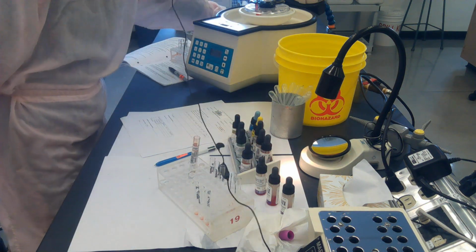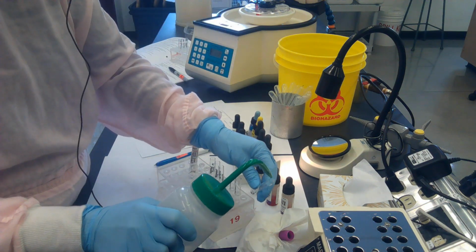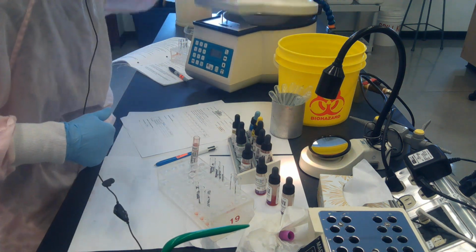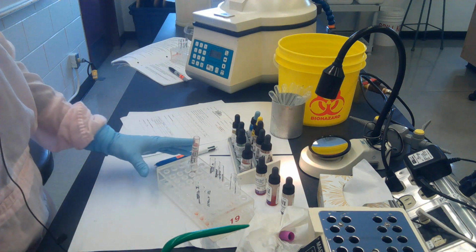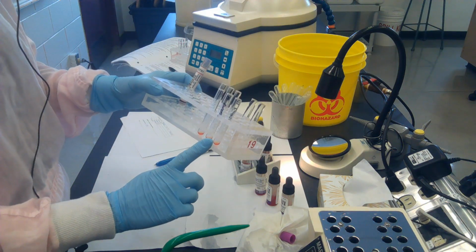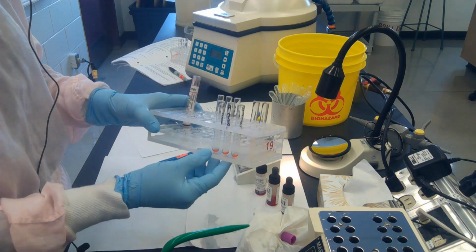Washing cycles are typically 45 seconds for a wash. So I'm just filling a balance tube, putting it on the opposite side, and setting my centrifuge for 45 seconds. In the meantime, what I can do is get started on my screen. Why not get it incubating? It's just a more efficient way to use your time.